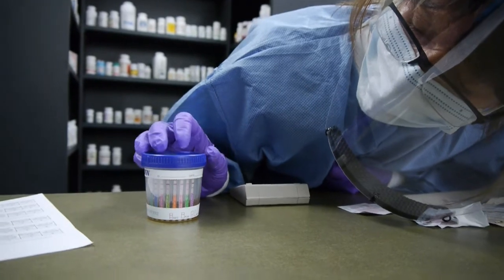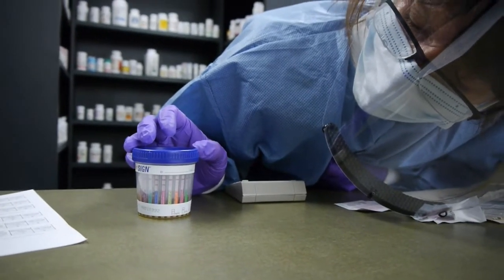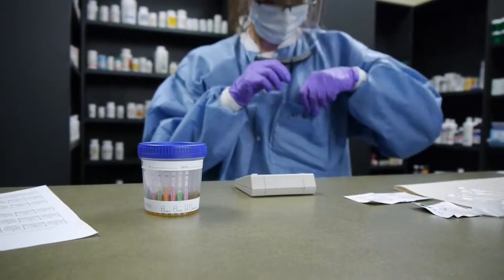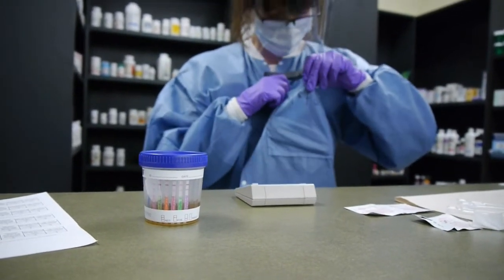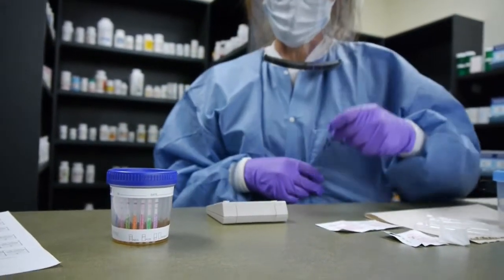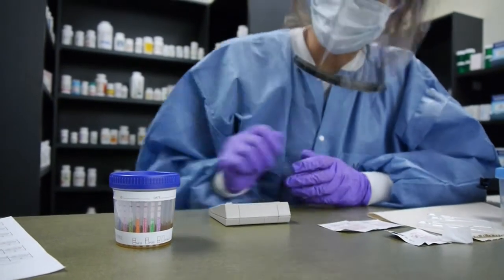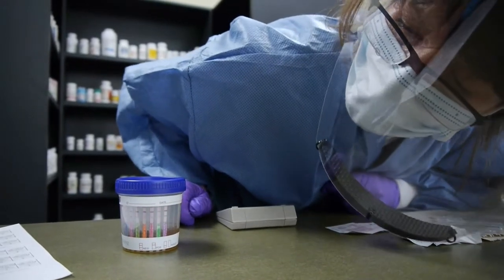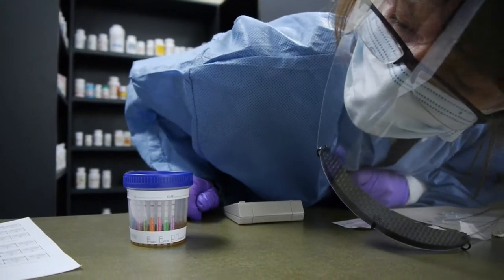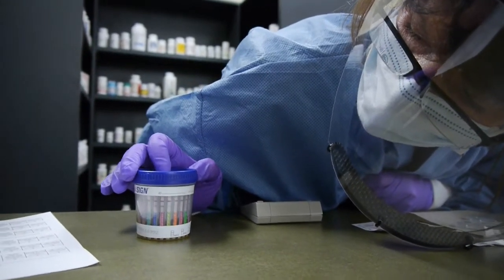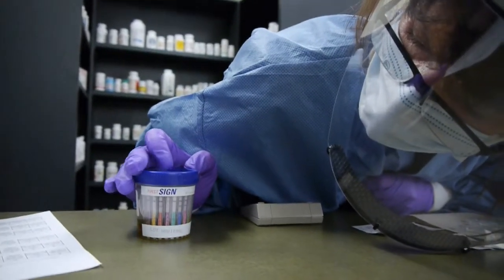I do not have you do your own urine for obvious reasons. This particular sample is a urine from clinical samples because I suspect there's going to be some positive test results. We were hoping for two lines everywhere.